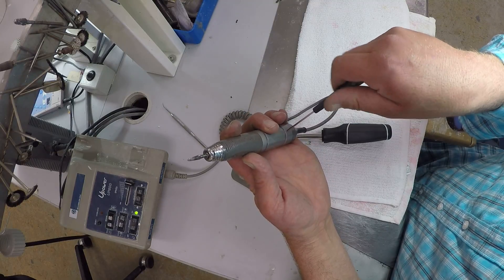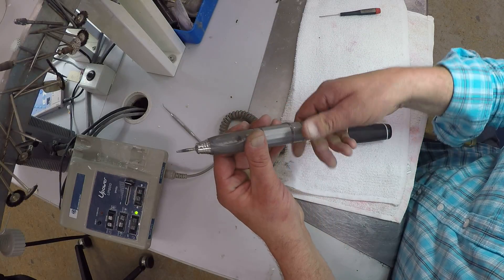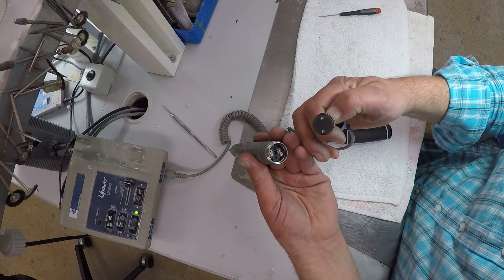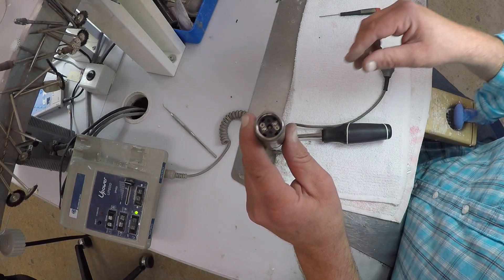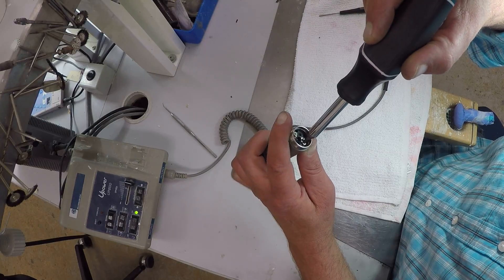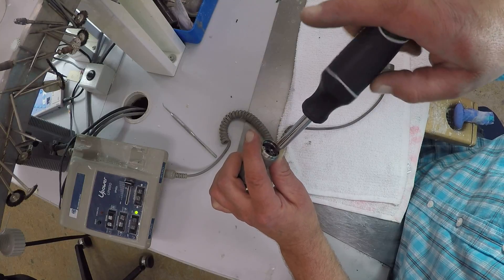I'm just going to remove this — a little tiny screw. Be careful not to let this get away, it'll be hard to see. Unscrew that, pull this plug out. There's positive and negative in there, so put it back the same way. Inside of here you can see there's a little flathead screwdriver notch. We're going to open this up and unscrew this. This is the housing for the brushes.